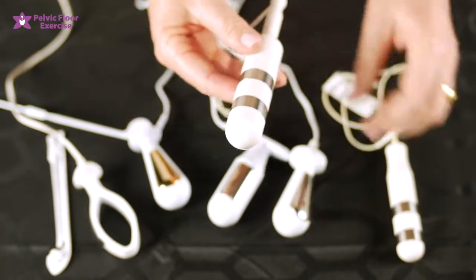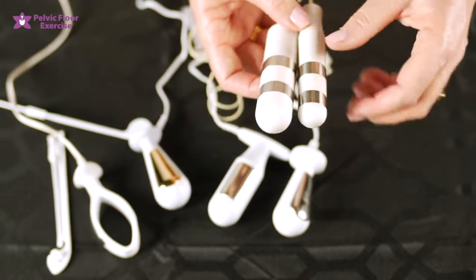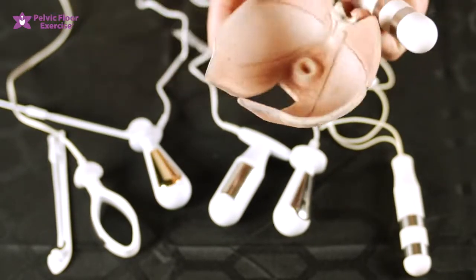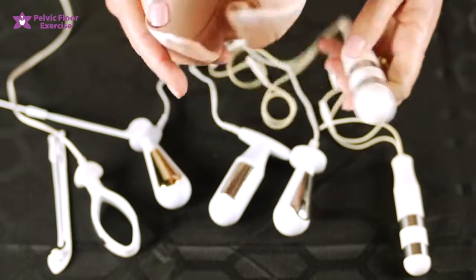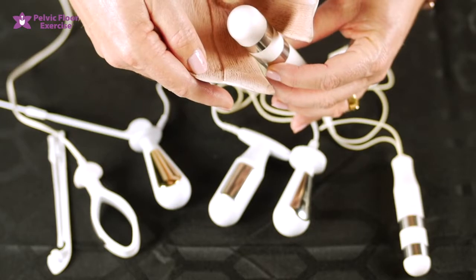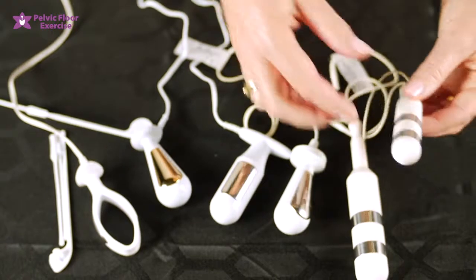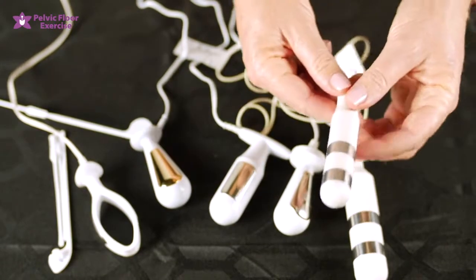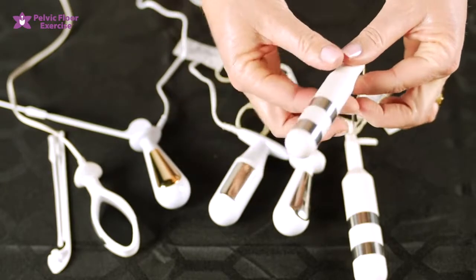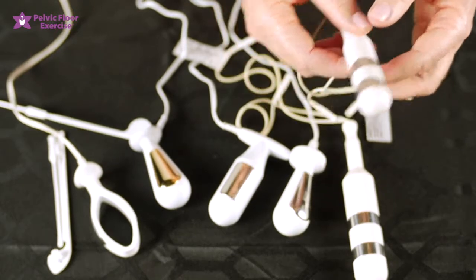The 25 mm is a little bit longer, taking into account that some people have a longer or shorter vagina and some people have a larger or smaller levator hiatus. The electrode actually needs to sit in the levator hiatus. Because these electrodes are straight, you will tend to need to hold them in as there may be a tendency for them to slide out, but the advantage is that you are ensuring contact all the way around.